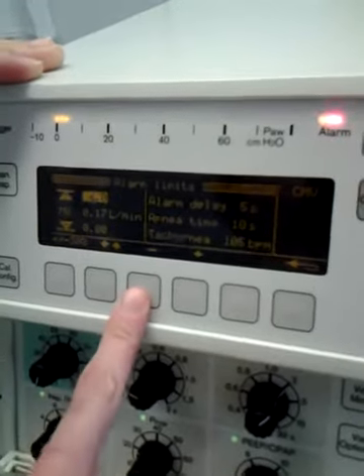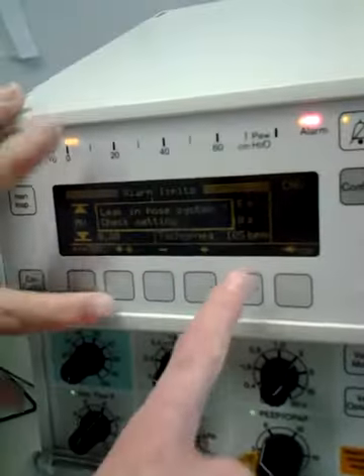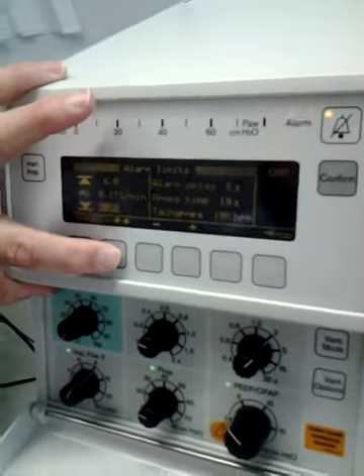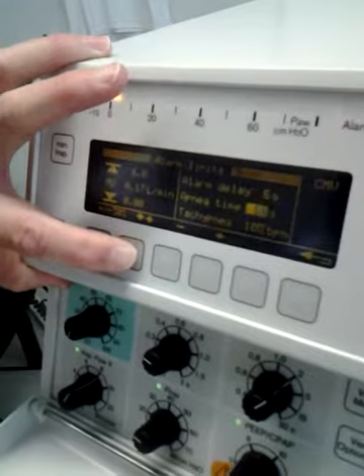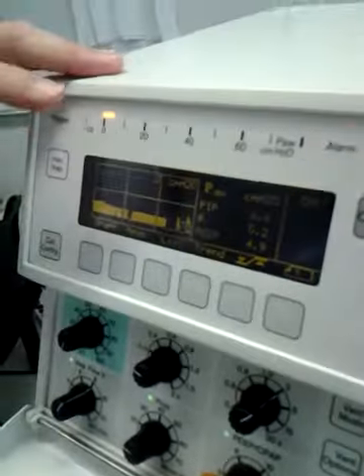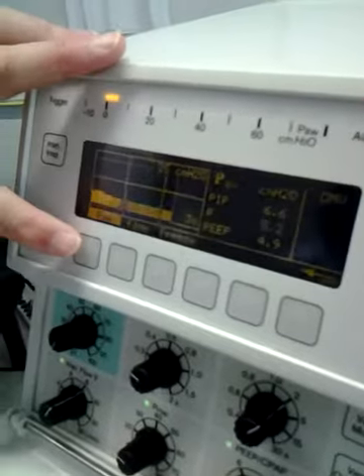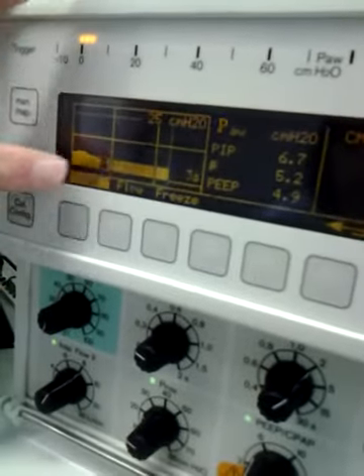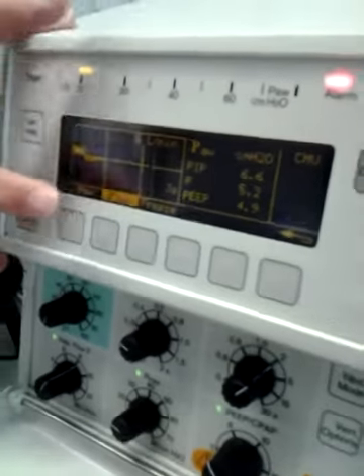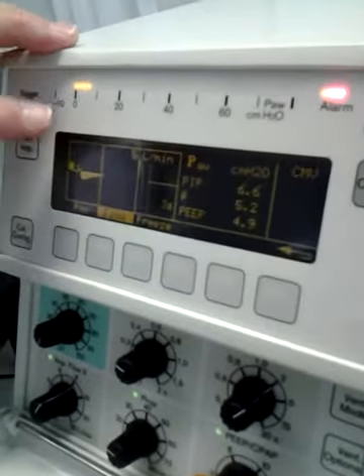Right. And then how do you get over here? Use your arrows to move the block. Okay, got it. And it'll just scroll through all your blocks. Okay, what are the other ones that we need? And that's your home button. Your graph is basically this. It changes it from pressure to flow or freeze. So you can change this to flow, and it's going to show you inspiratory, expiratory on the flow pattern.